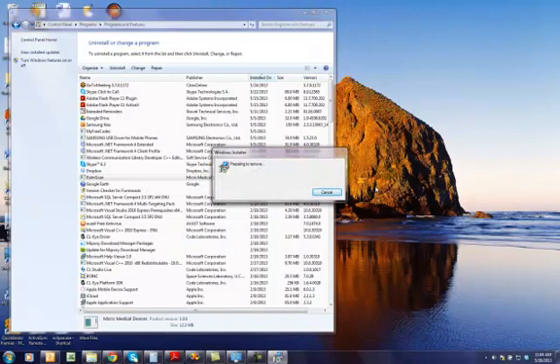And once you have uninstalled it, you can proceed with installing the new version. While this software is getting uninstalled on my system, I want to show you how to find out what type of PC you are installing the software on.